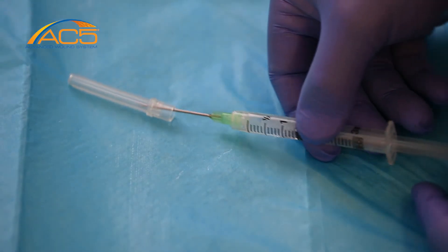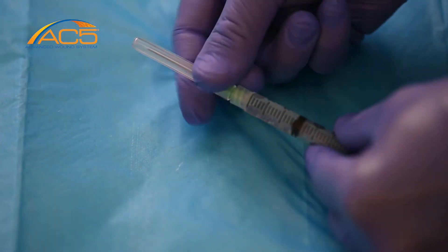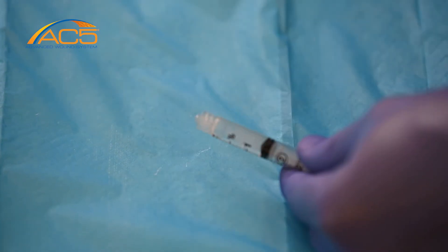After the peptide solution is drawn into the syringe, replace the needle with a blunt applicator.